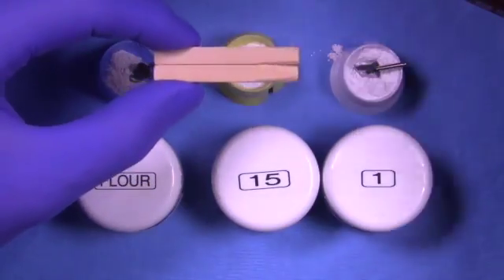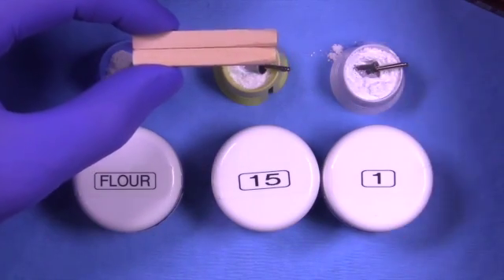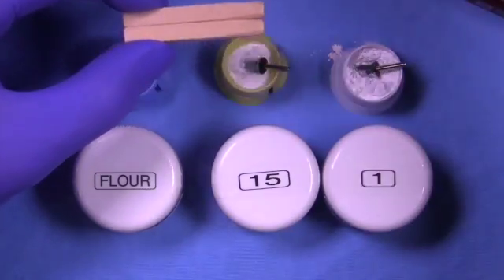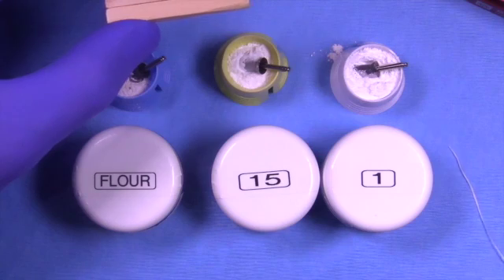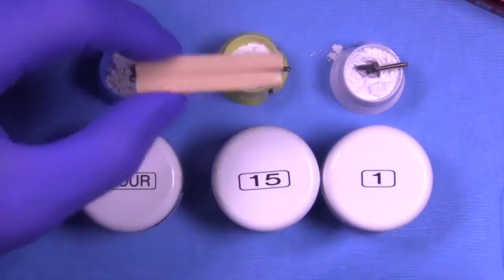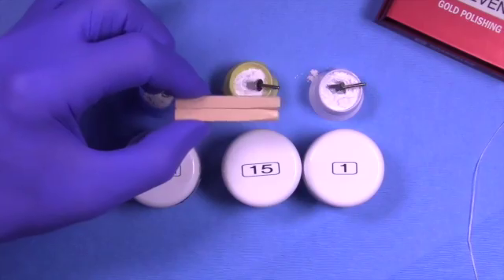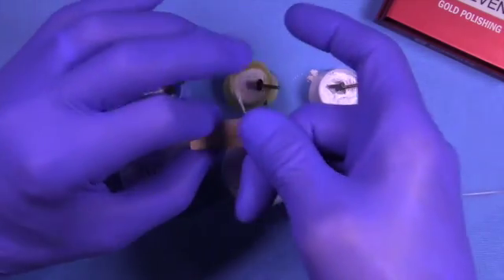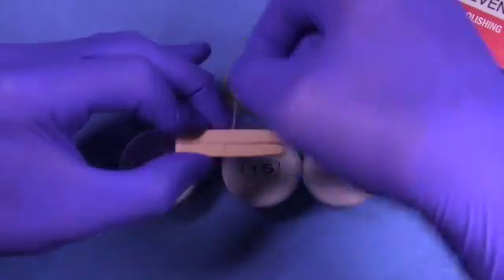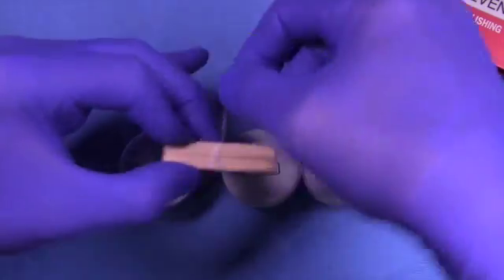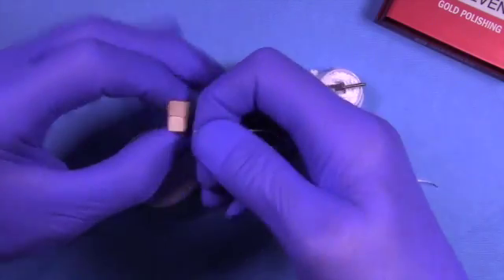Then we want to utilize a bite stick assembly like this—it's really a floss-tethered double bite stick. Now why would I use two bite sticks and not just one? Well, the reason is because all these restorations will be cemented with the rubber dam in place.